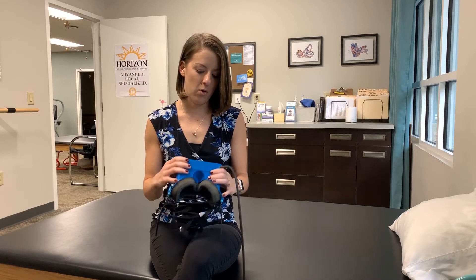Overall, I think Vestibular First has put together a really good second version of their infrared goggles. They took all of the feedback from clinicians using their first set of goggles and put that into a new version to make it more streamlined, usable, and really great for patient use. I really enjoyed using this system — it was simple and easy to use, the patients really liked the technology, and it was a great addition to our clinic.